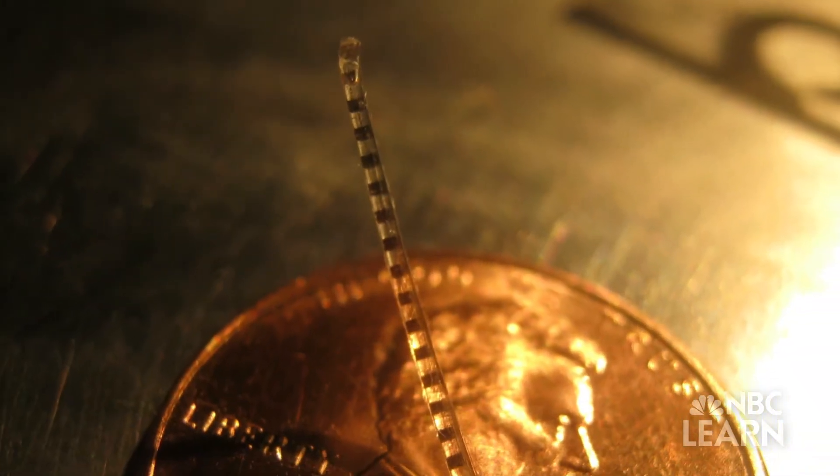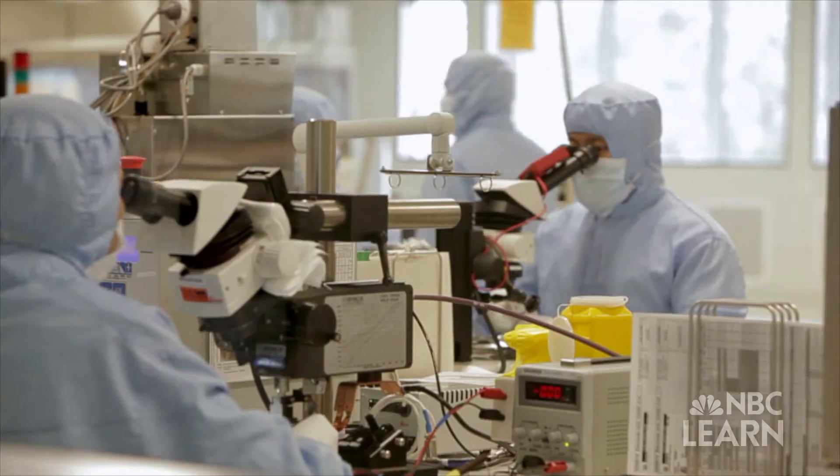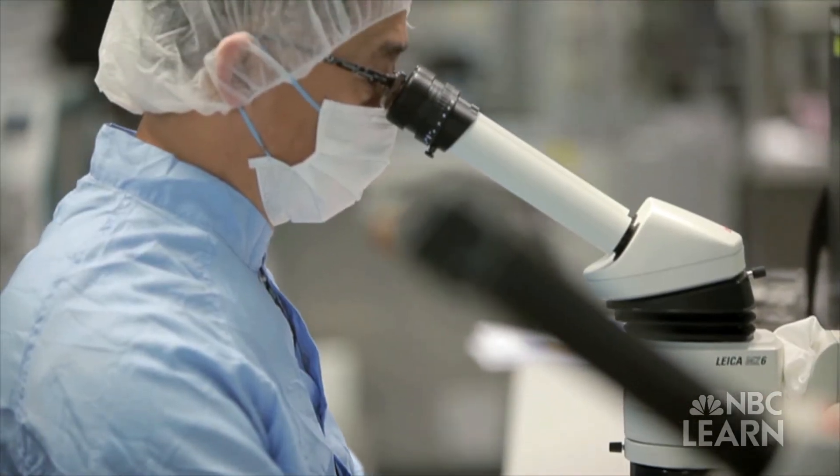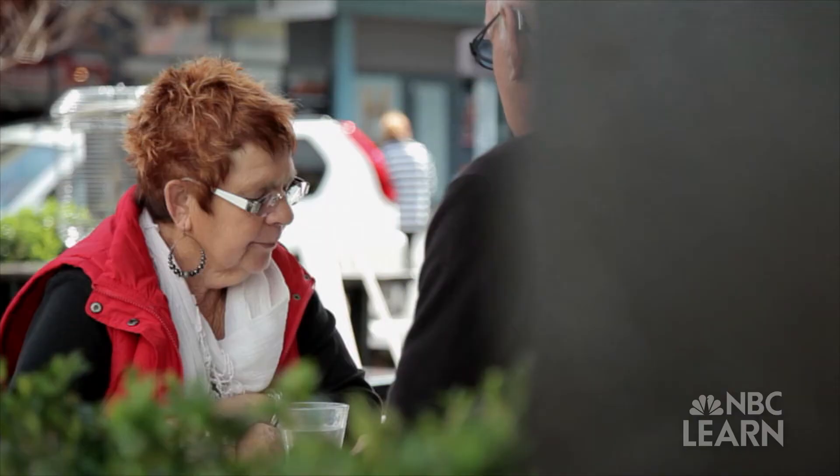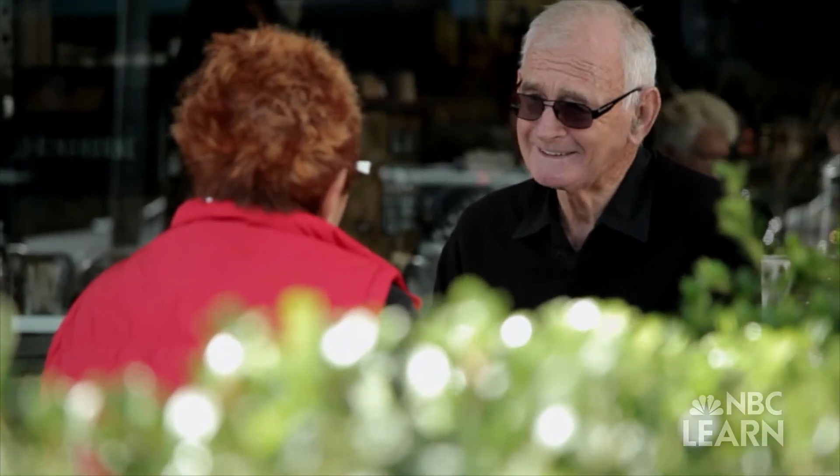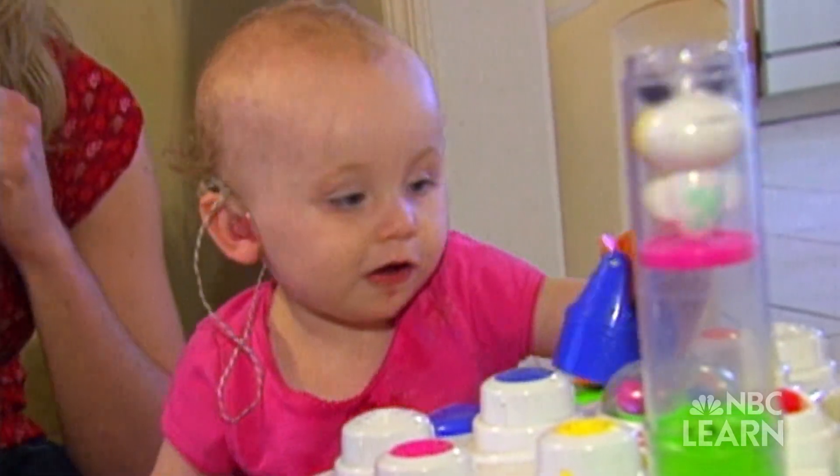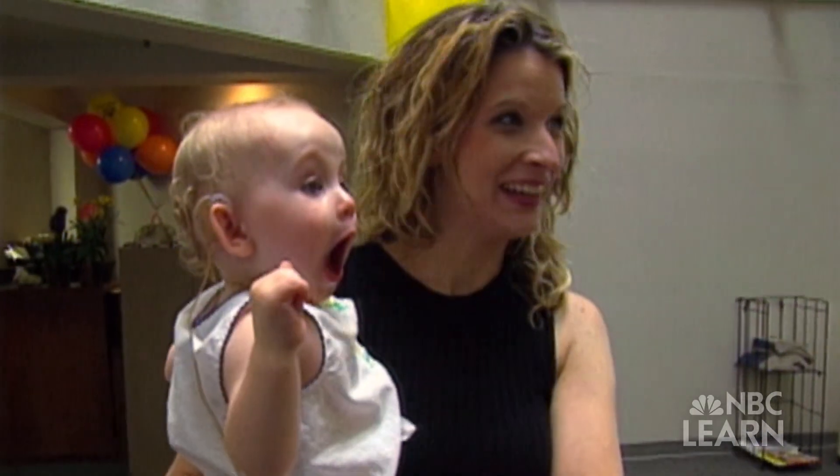Being able to do things to really improve the technology is really kind of a motivator for me to improve the quality of life for patients. Her company's goal is to sell these electrode arrays directly to cochlear implant manufacturers, but Johnson's personal mission is to help give people the sense of sound and a better quality of life, the innovation process at its best.